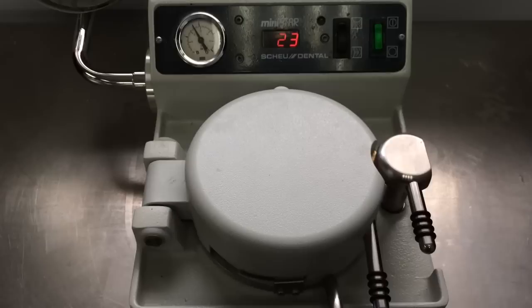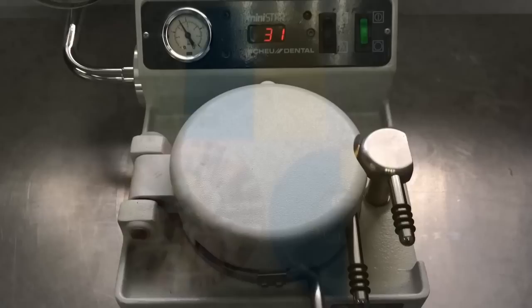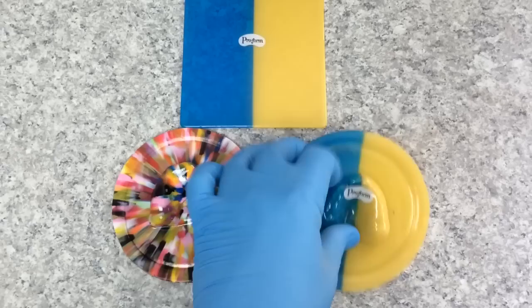And in just a few seconds, we'll be able to take this out and we'll have our mouth guard that's formed. Okay, so here we have the mouth guards that are now formed to the models. So the air has pushed it all down onto the model.